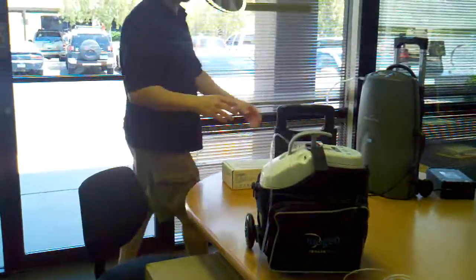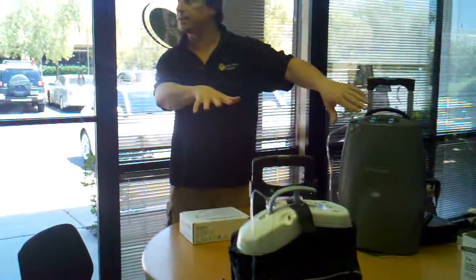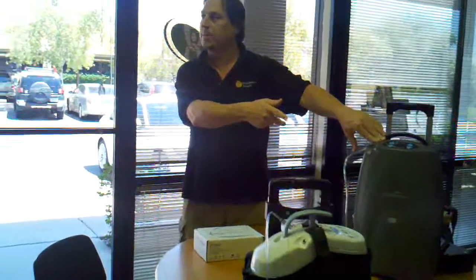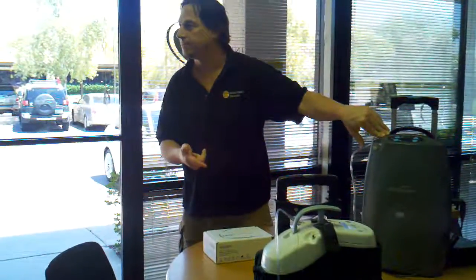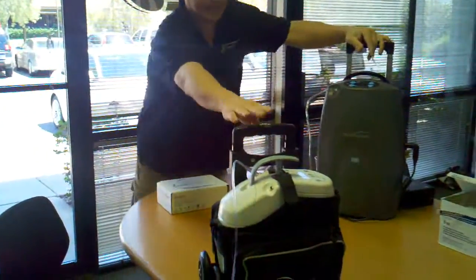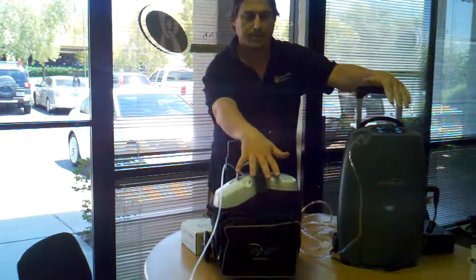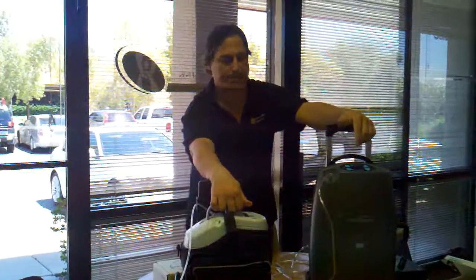We come over here and this is the Eclipse. We're talking about the differences between the pulse dose and the continuous flow, because we have a lot of people that order portable concentrators from us and then it's not enough for them. This one does pulse too. You can see the size difference — this is because the compressor, they can get them smaller. This is Tom, our repair guy. He repairs our portable concentrators, so if anything happens we have an in-house person that takes care of this.